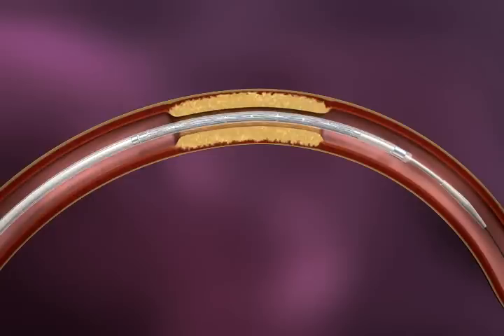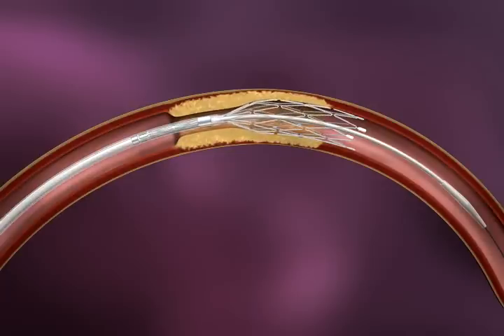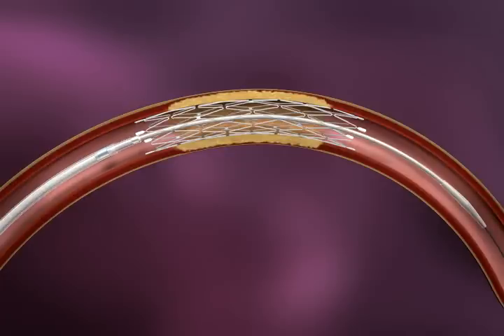To deploy the stent, the inner body should be held stationary with one hand while the other hand withdraws the outer body. This results in an unsheathing of the stent. Once the stent is fully deployed, the delivery system is removed.